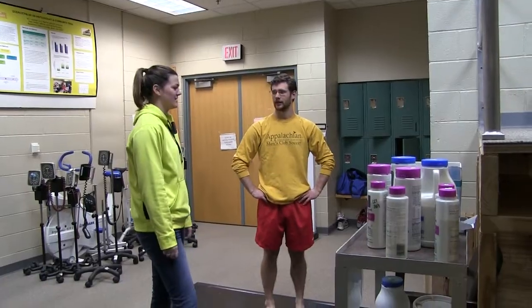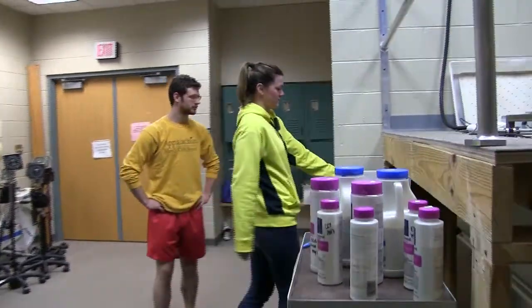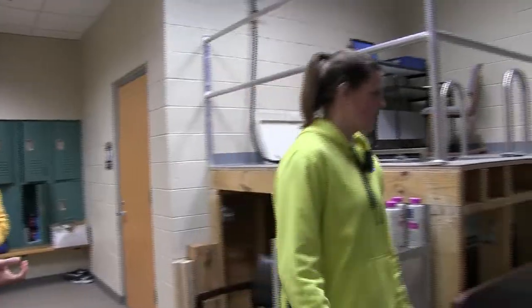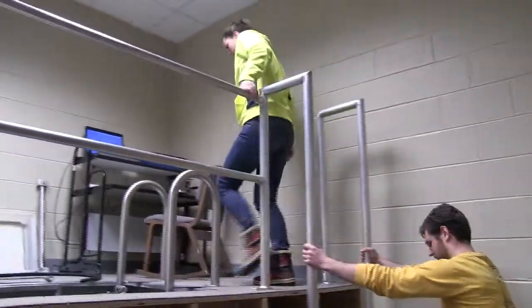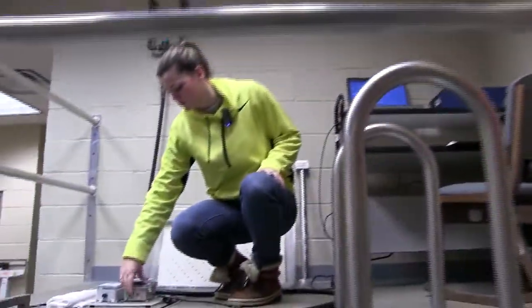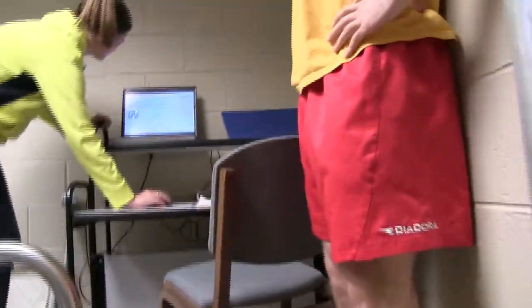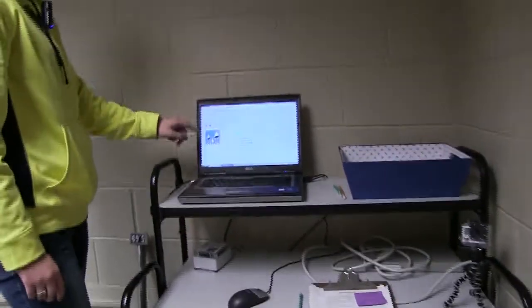So how does this thing work? How do you actually calibrate it? First, we need to make sure the tank is off — we're going to flip this switch and you'll hear everything stop running. Then we come up here; we've got to do some stuff on the computer and flip the switch to actually turn it on, which is right here. At the computer we're going to switch it to 'box' and you'll see these lights turn green.